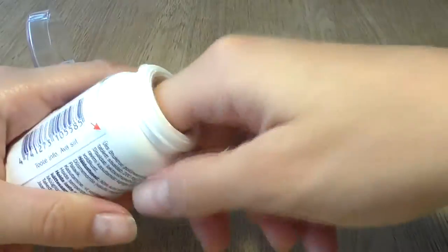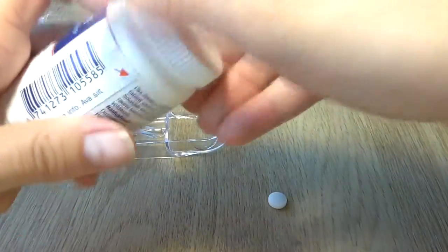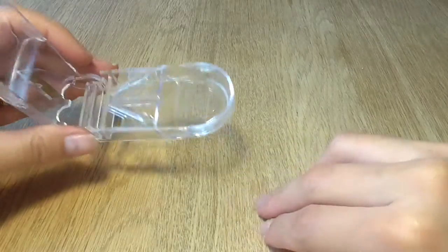I have here a tablet and it's a common painkiller that people use. You have to place the pill in the right spot and this small but sharp blade will cut it in half.